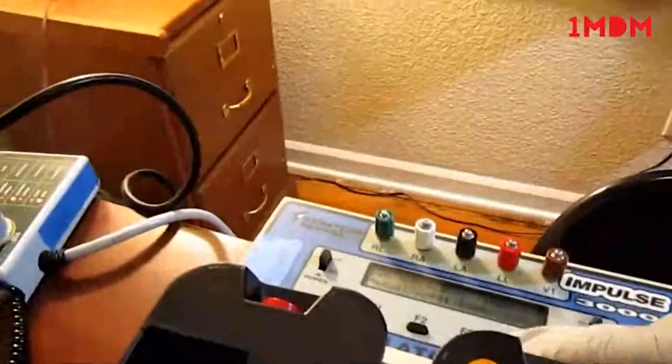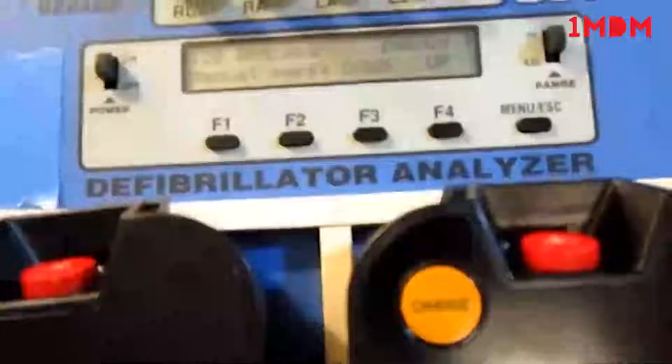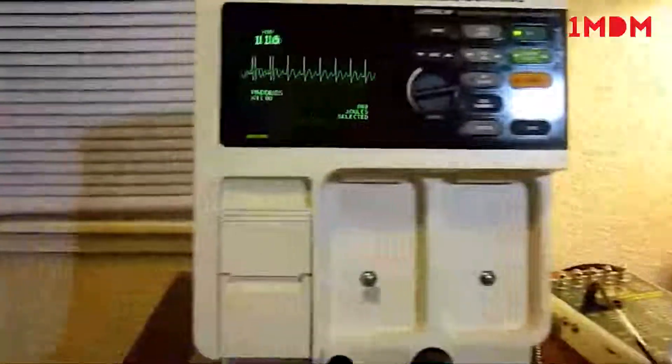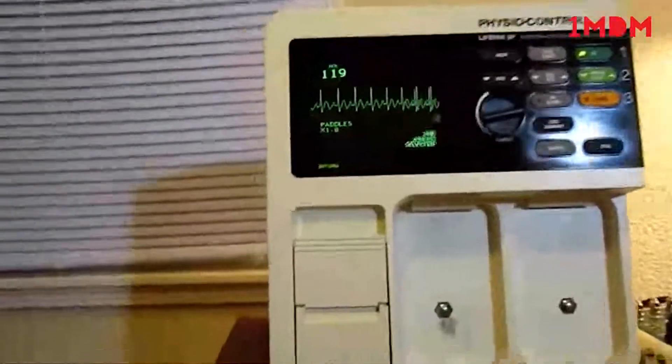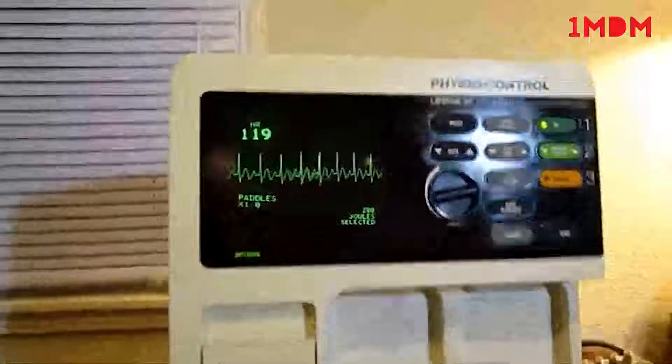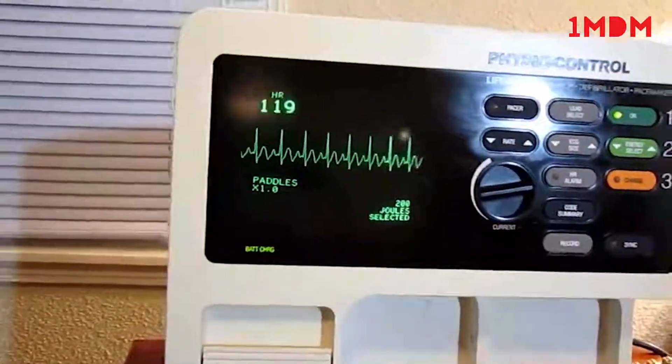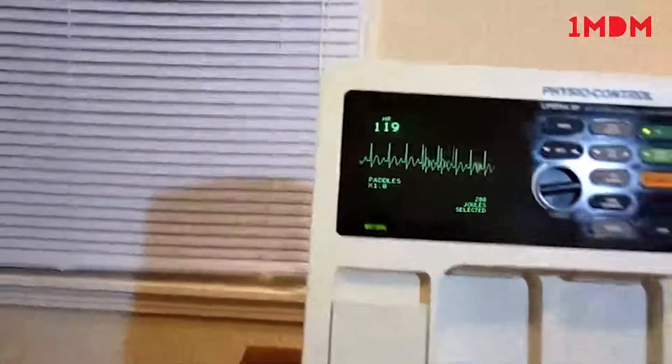Now we're going to switch it to 120 beats per minute. We see the monitor displaying 119 for the heart rate. It's pretty close.